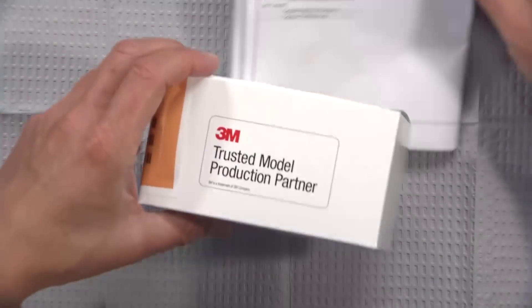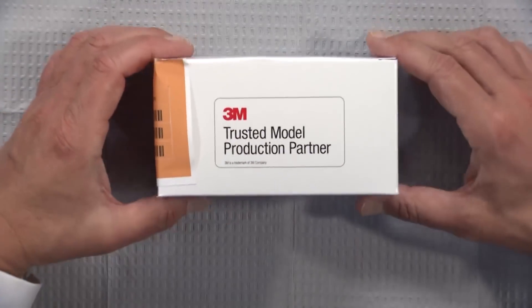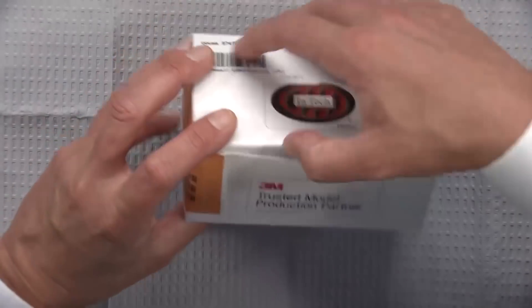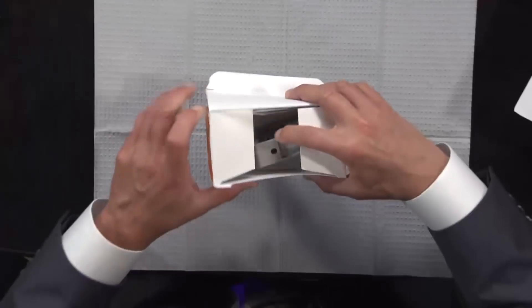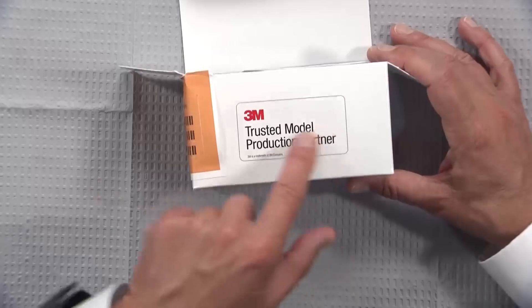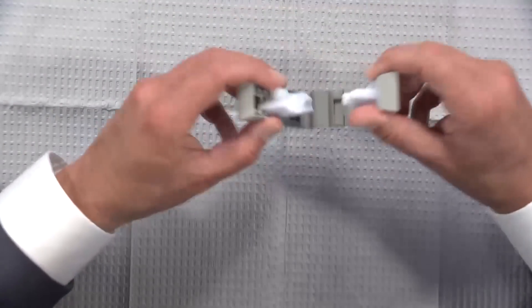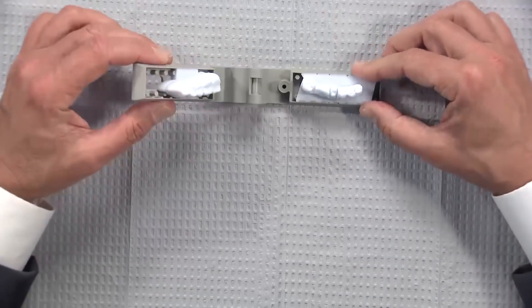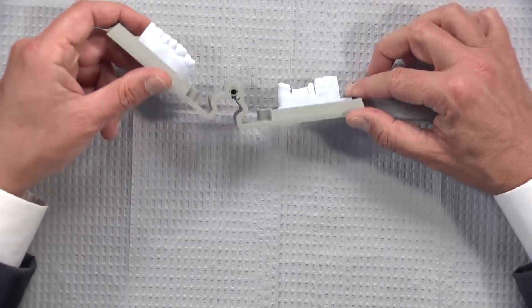3M has, as you can see, some partners that they trust to print their SLA models. These are laboratory partners that have been verified as doing a good job for them and they know that it's going to be accurate.